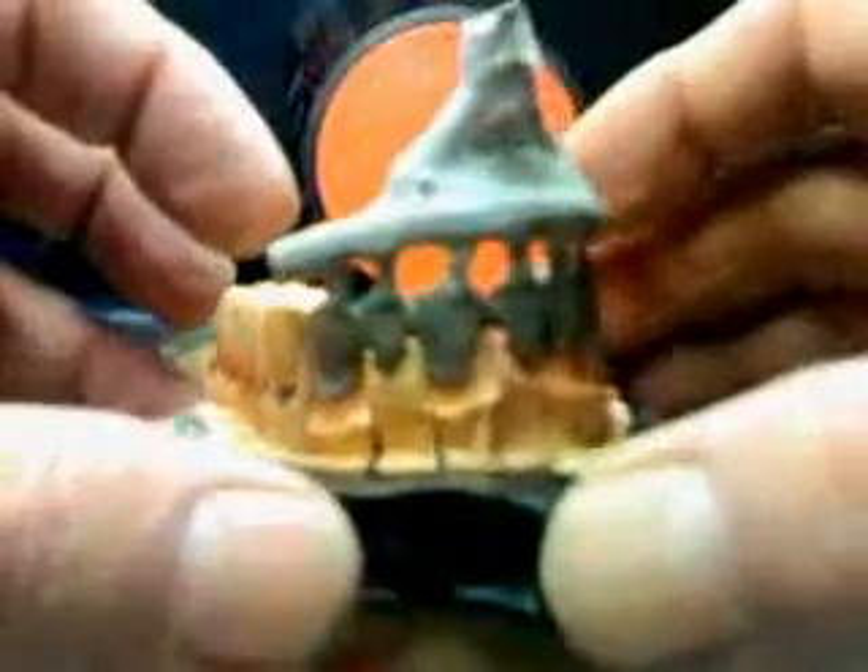For a lot of dental technicians, this is a good result — to sandblast your casting and have it come straight off, especially if it's a seven-unit like this. These kinds of castings are a nightmare for a lot of people, but if you know just a few hints about dealing with them, you can get away with anything. Next, we'll be cutting the casting off. My compressor went off in there — let's see how this keeps developing.